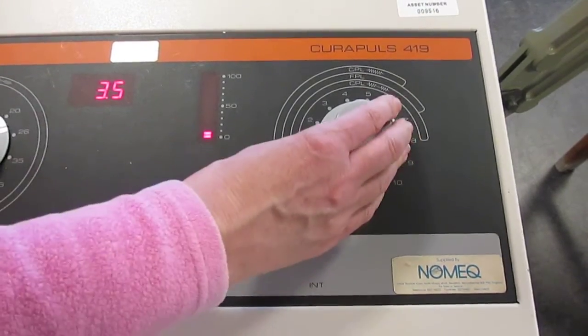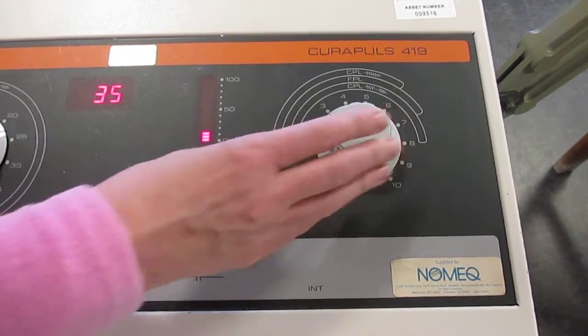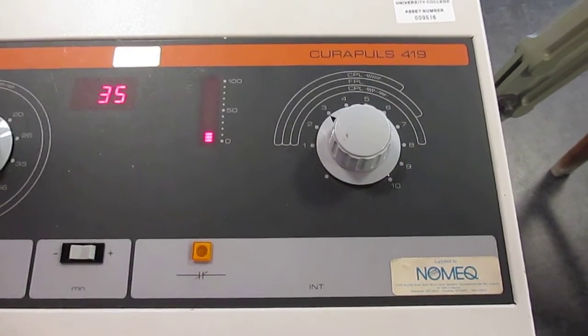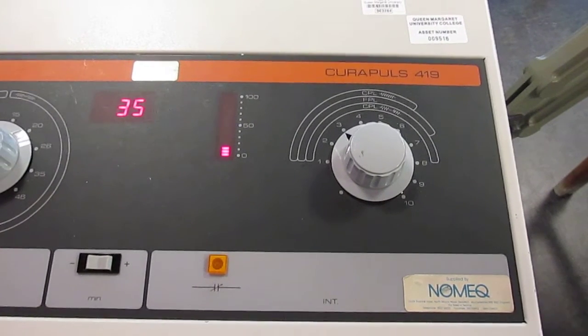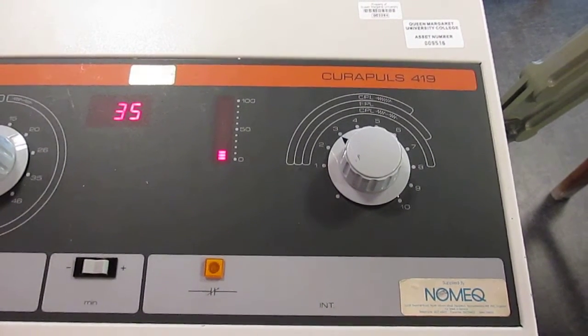You go up to the desired peak pulse power that is appropriate for the lesion that you're treating.